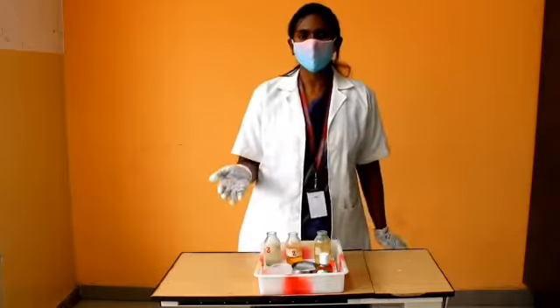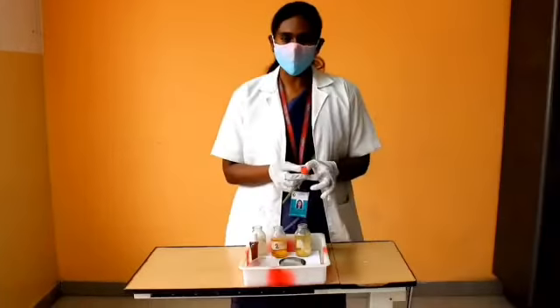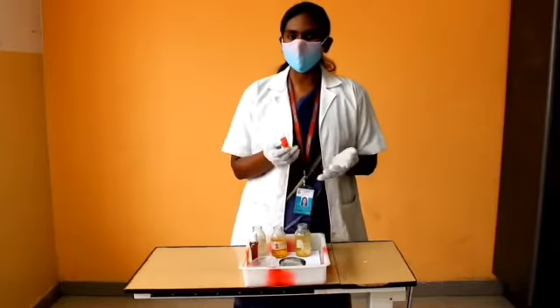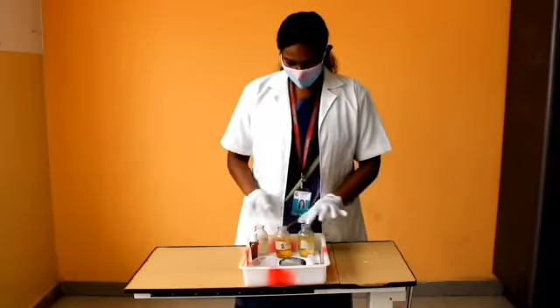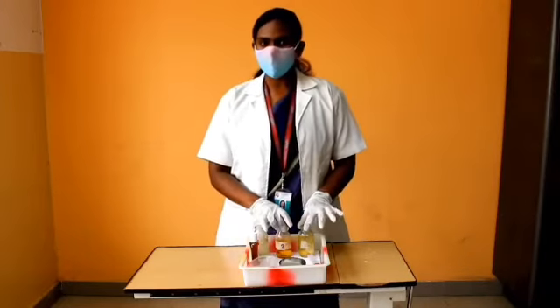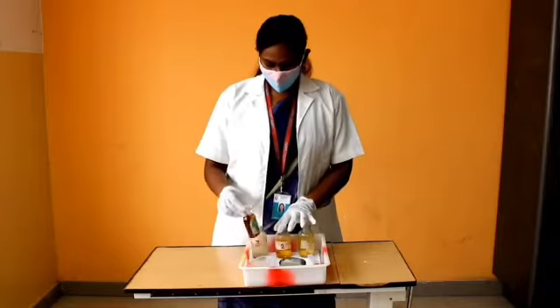In the temperature tray we will need the following: thermometers — there are several kinds, but here we will use a glass thermometer. Three solution bottles are required: the first two contain Dettol solution — one at a 1:40 ratio — and the third contains clean water.